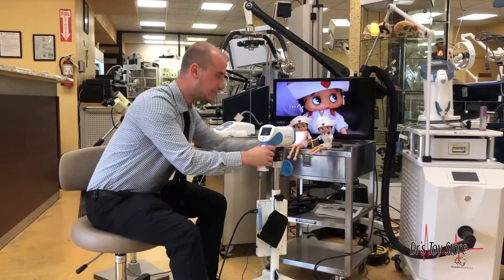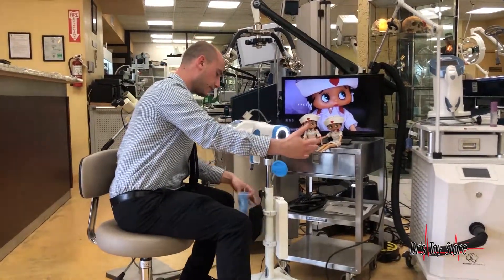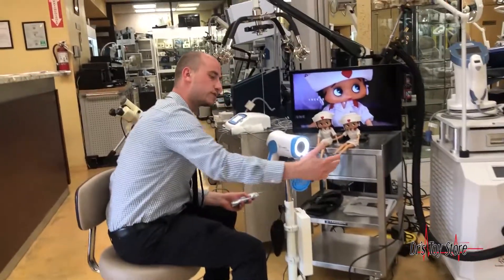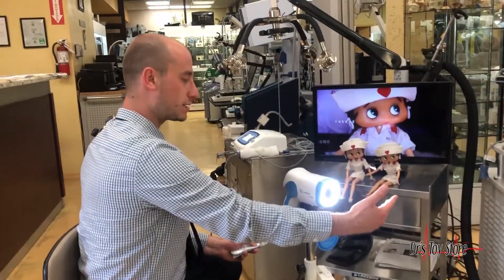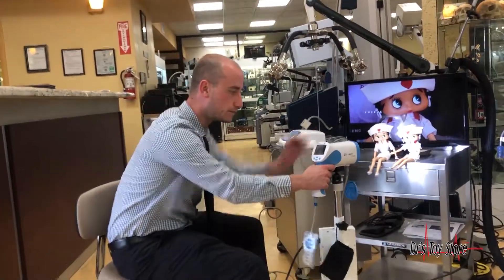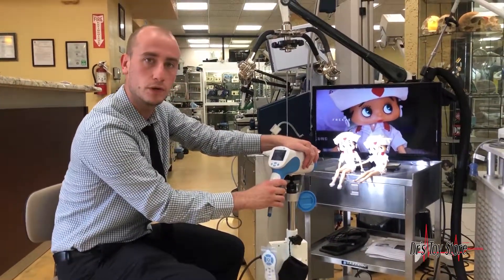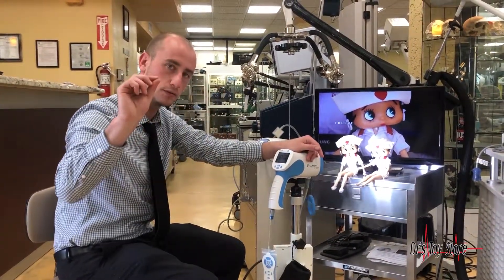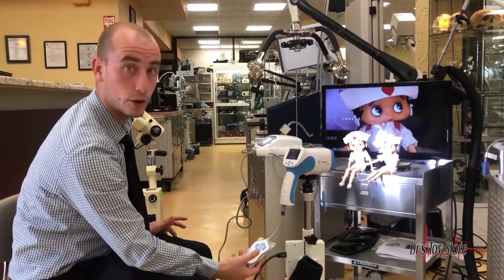You have your LED light as you can see here — it's very bright. And what we did was smart: when you're in a colposcopy and you're moving this to focus it, you don't want to click buttons on the device itself, because any sudden little bit of movement can throw you off. So we put the buttons on the remote.